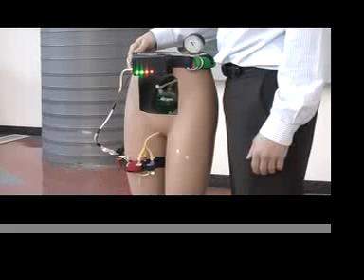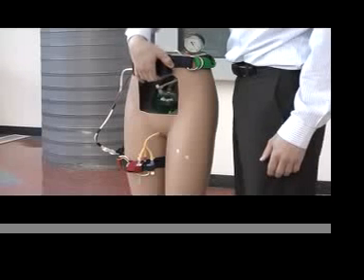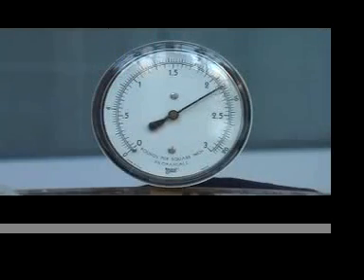After the user has found an opportune time to void his or her bladder, the user can push the valve control button once, which initiates urine flow out of the catheter. The pressure in the system drops as the bladder empties. Pushing the button a second time causes flow to cease.